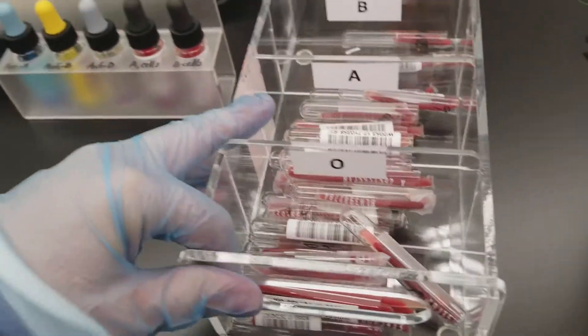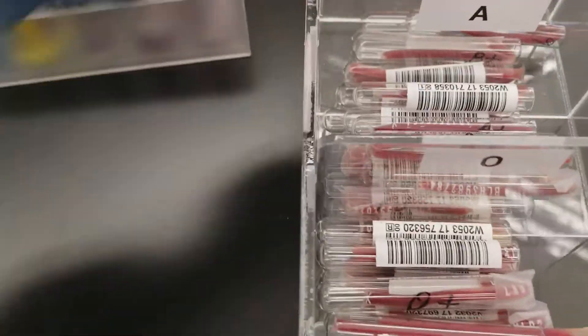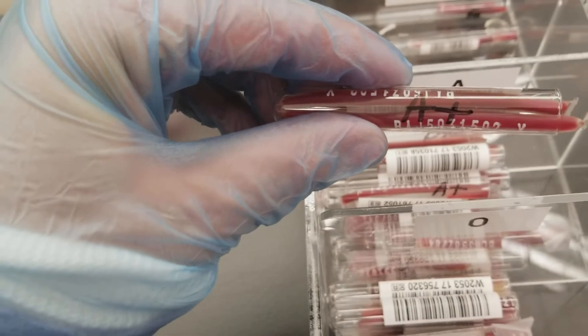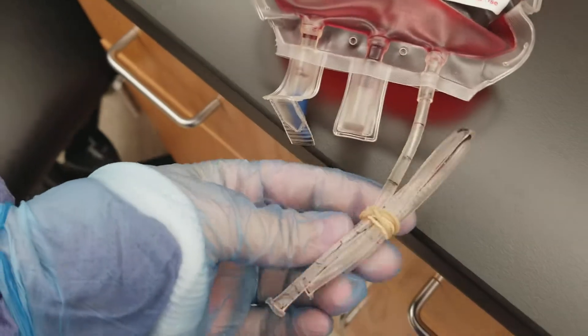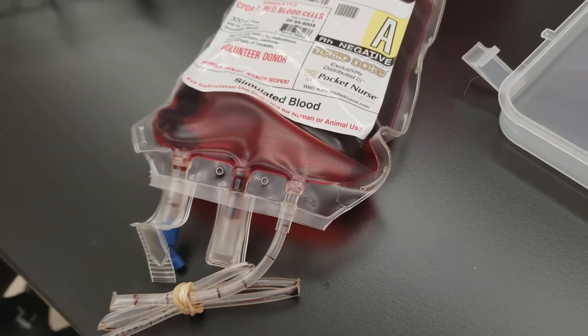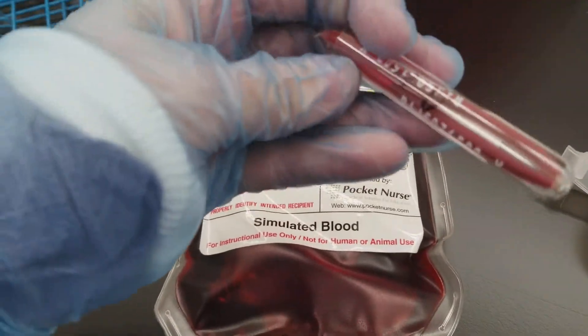When you go to try to find a compatible unit, you want to go to your blood bank refrigerator and get a segment from the unit. This is our blood bank for our classroom. Since I know I want to get something that matches the patient, I want to get an A positive unit. Here are the segments for an A positive unit. When you go to get segments from an actual unit, the unit looks like this and the segments would have blood in them. I actually picked an A negative here.